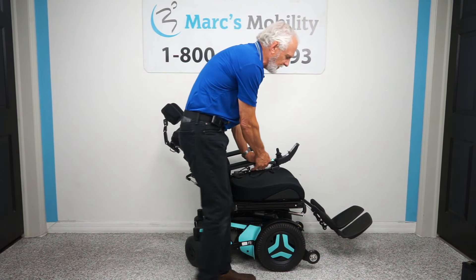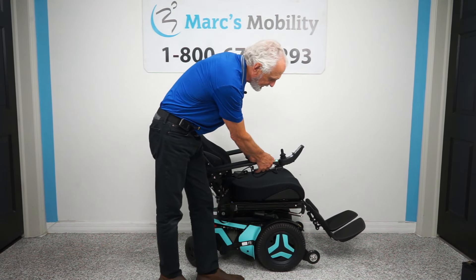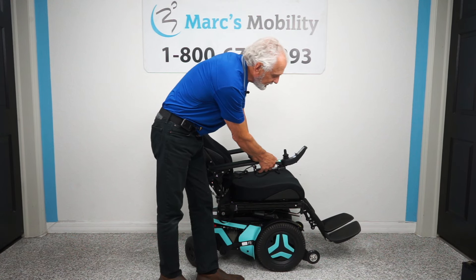When you're outside, I would recommend leaving those legs out a little bit to give you more clearance under the foot plate. This one's got plenty of clearance.